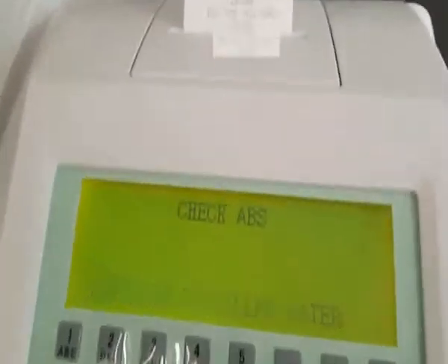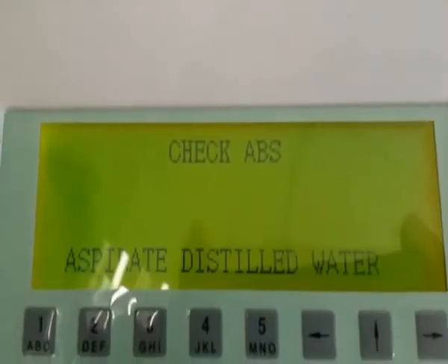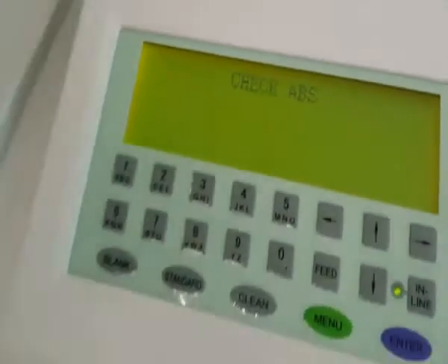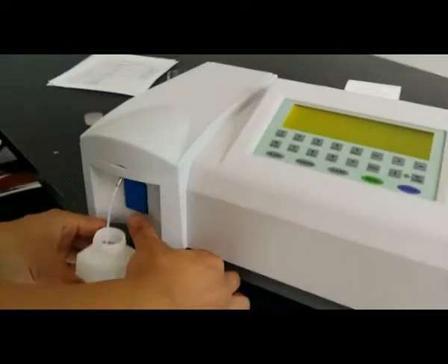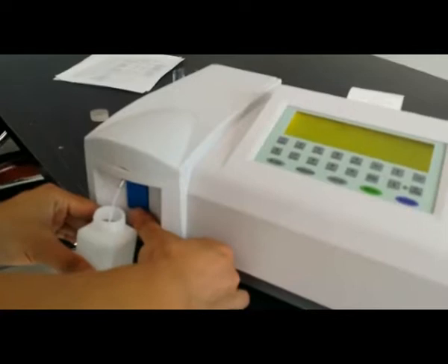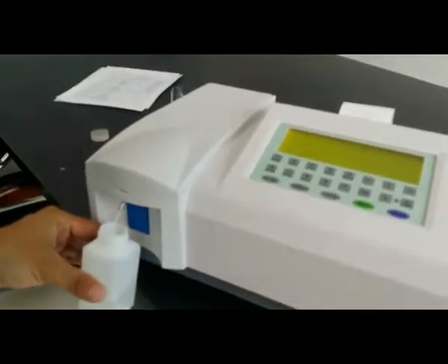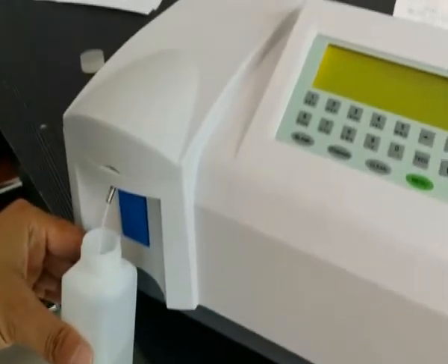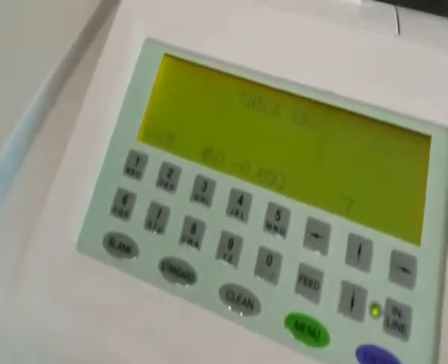You can see that in the interface, first the machine should check the absorbance. Press the button. It will automatically check the absorbance.